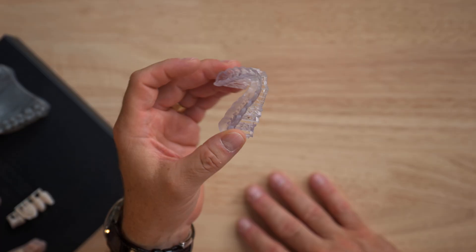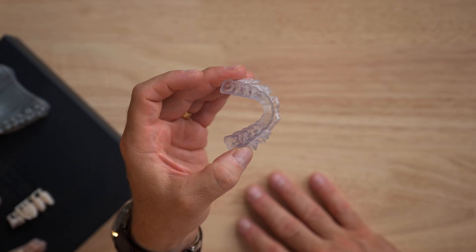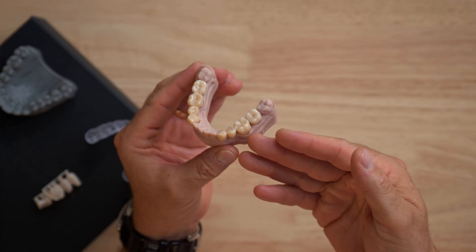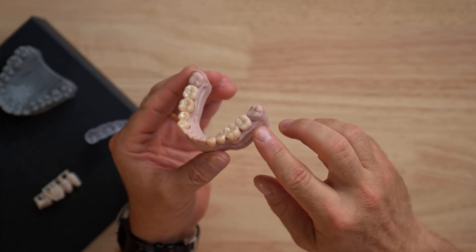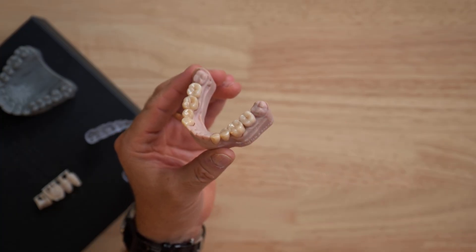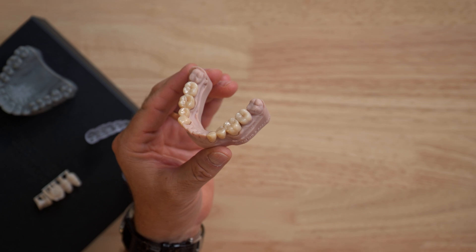Our dental technicians also print splints in a flexible, transparent material, temporary bridges in tooth-colored resin, or more advanced prints like this definite crown, made from a hybrid material of resin and ceramic.